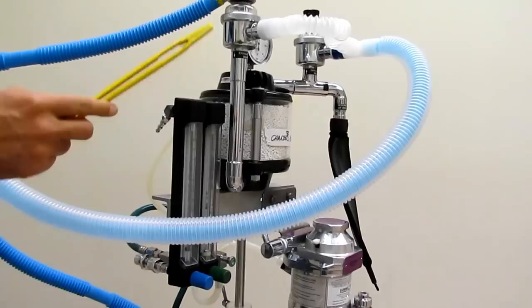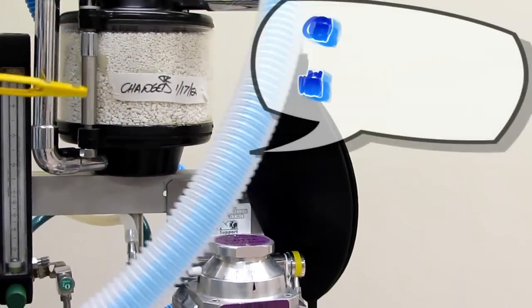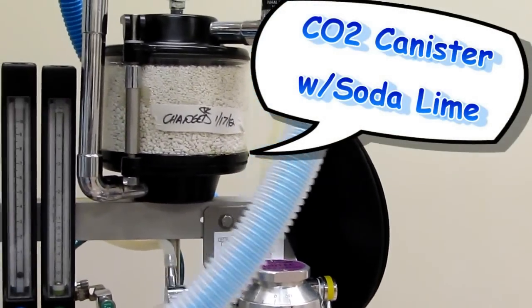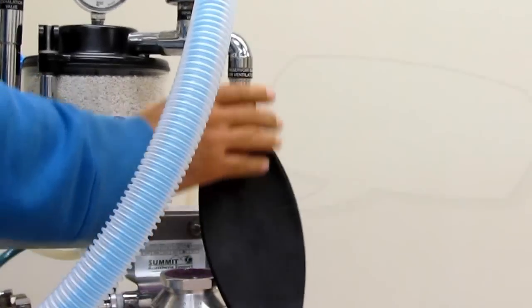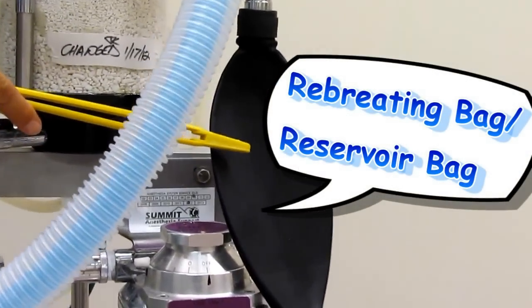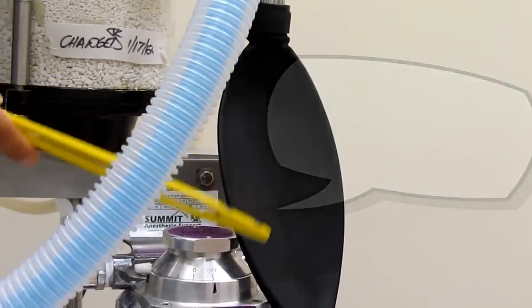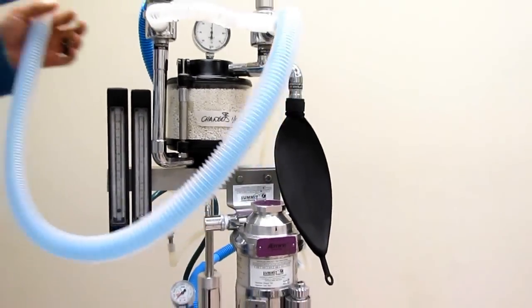In a rebreathing circle system, as shown here, gas can be recycled. Gas is recycled by going through this CO2 canister. The CO2 canister takes carbon dioxide out of the circulating gas. Another important component is the rebreathing or reservoir bag, which catches excess gas in the system.